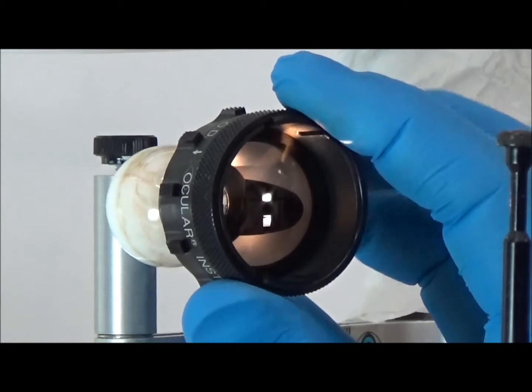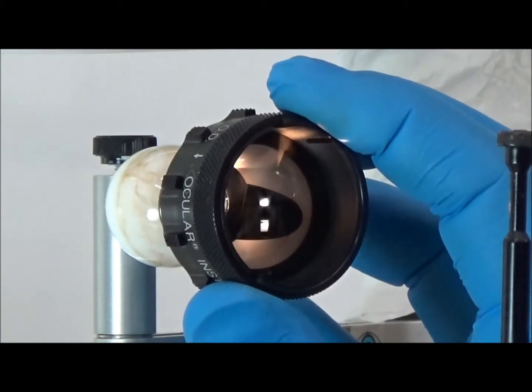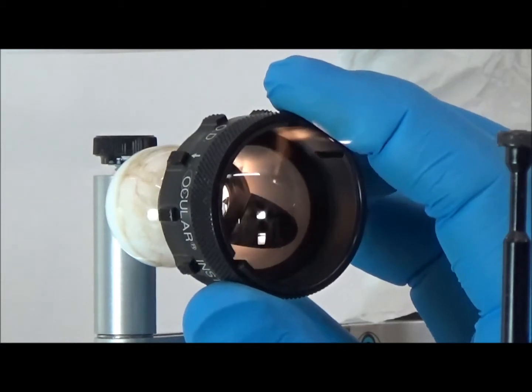Once the lens is rotated past the magnetic engagement, the rotation is free and smooth until the next indexing position is reached.